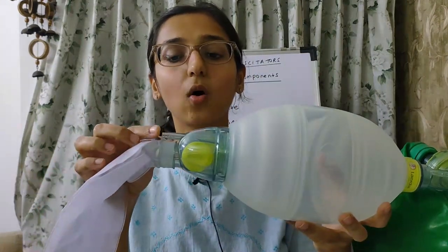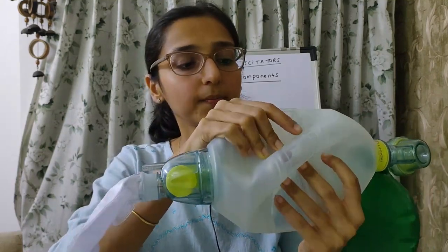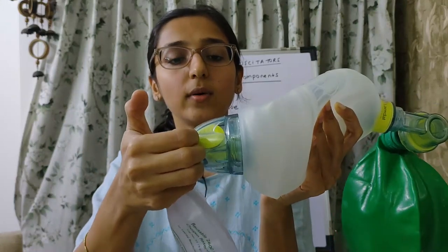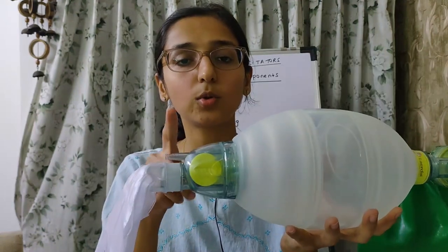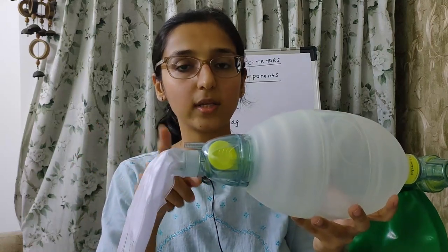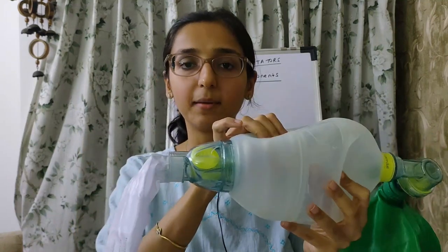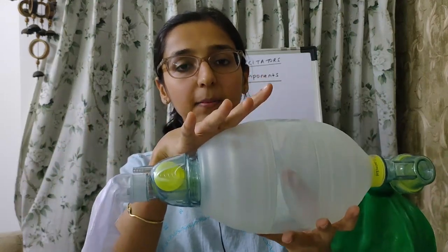To check the oxygen nipple port: completely deflate the bag and occlude the wide bore port — the bag should refill through the oxygen nipple, confirming it is patent. Then occlude each inlet port individually, in turn, to verify both the oxygen nipple port and the respirable gas inlet are individually functional.